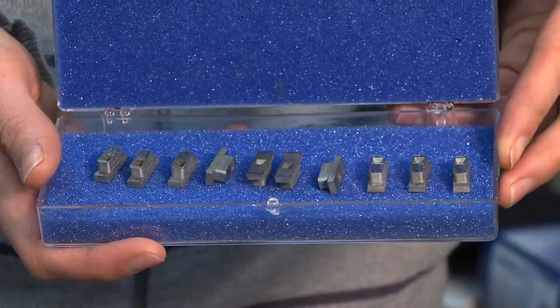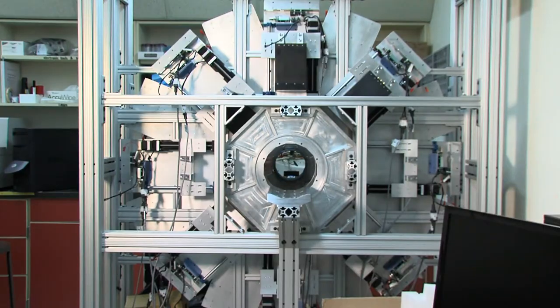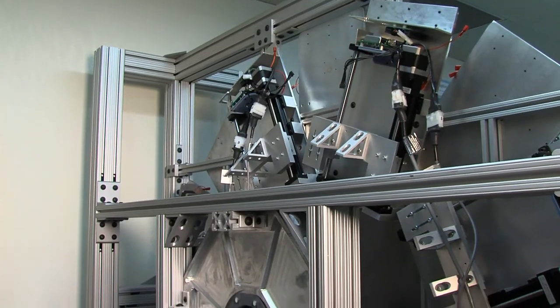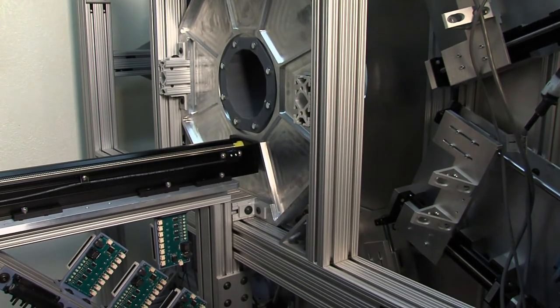There are three different magnifications available, and we can choose between using five pinholes or a single pinhole per camera. With this system, we get the benefits of a stationary SPECT system combined with the task performance benefits of adaptive imaging.